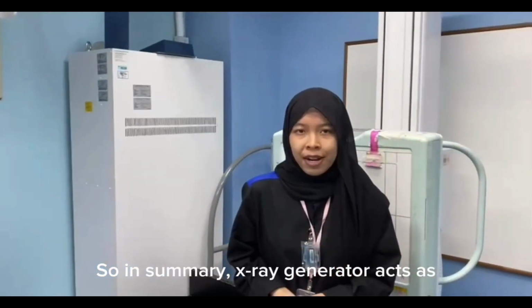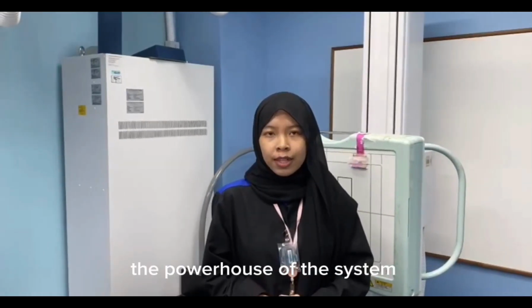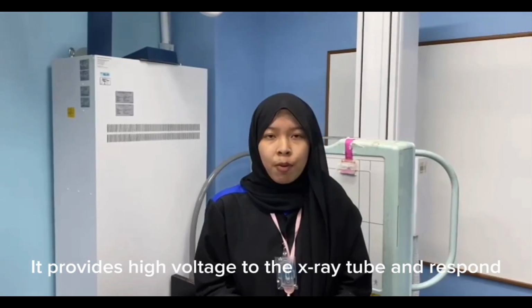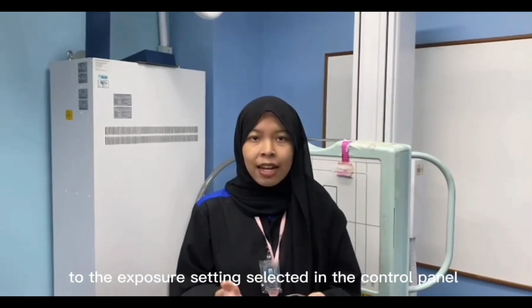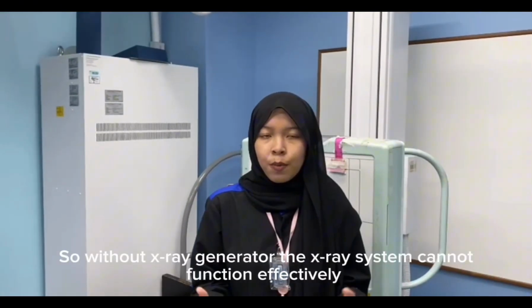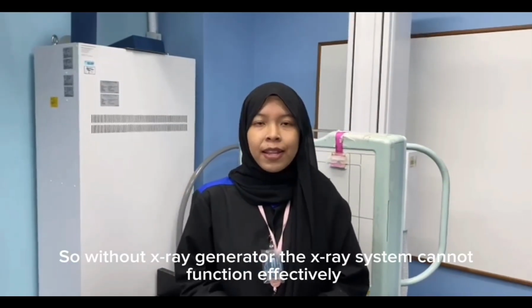So, in summary, the X-ray generator acts as the powerhouse of the system. It provides high voltage to the X-ray tube and responds to the exposure setting selected in the control panel. So, without the X-ray generator, the X-ray system cannot function effectively.